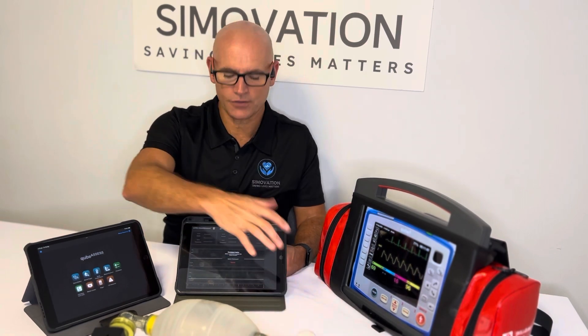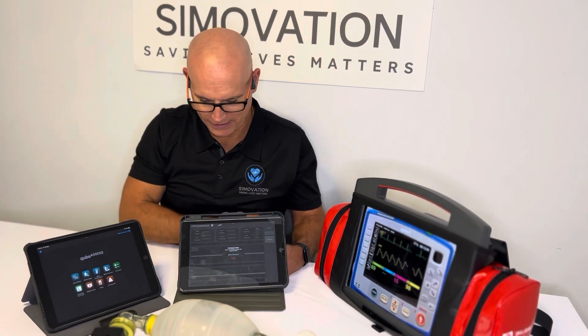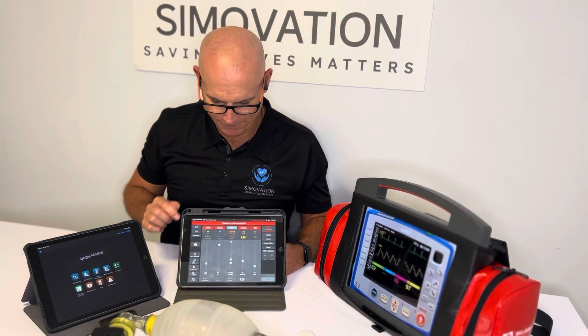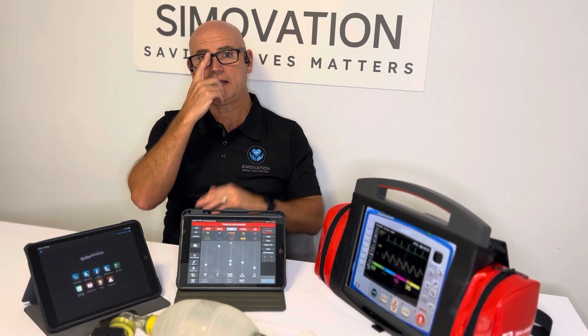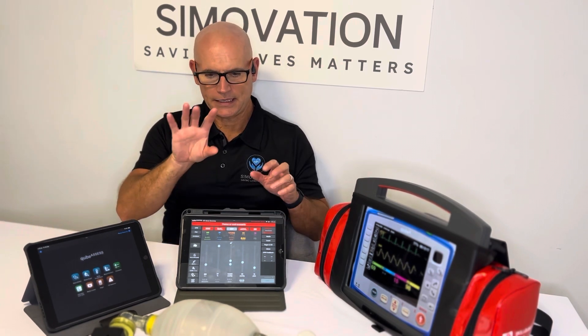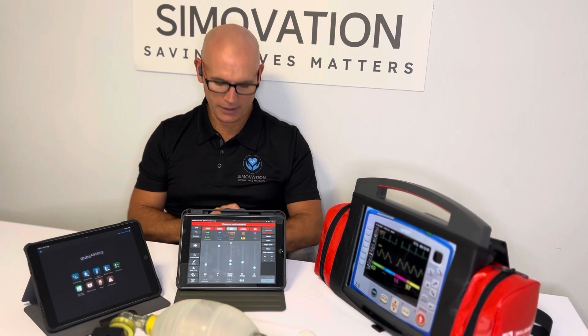If you're just using the generic defibrillator monitor screen, you can still use the CPR sensor and you will still get that feedback on the instructor device, as you will with any device. But if you're using a legitimate device that has CPR sensors built into the pads, then you will get that on the display there. I'm going to close that and go back to the main graphic user interface. In the next short video I'll show you how we interact with the participant tablet, the ventilation sensor, and the CPR sensor.